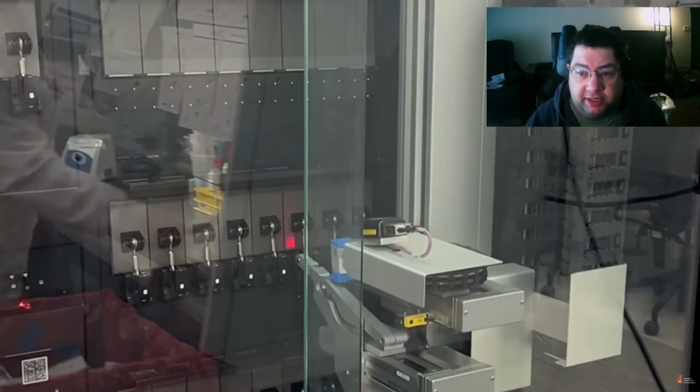It's also very expensive. Several hundred thousand dollars, if not a million. This is the big one. They make smaller ones. I think the smallest they make is either a 4 or 8 capacity one. Obviously no automated arm for those; you just load and unload yourself. I think the one at the hospital where I work now is 20. But this has a huge capacity, again running all the tests at the same time.